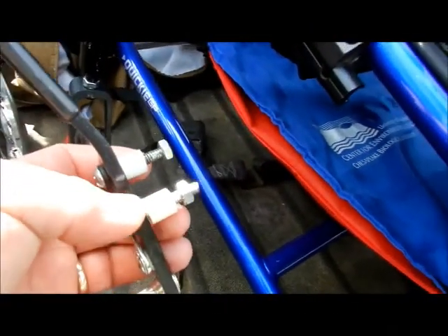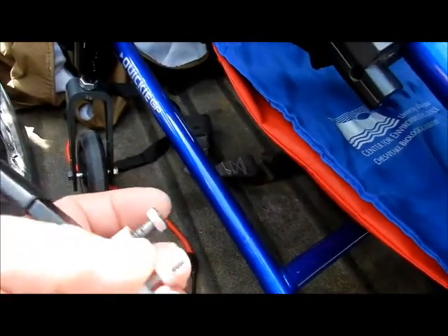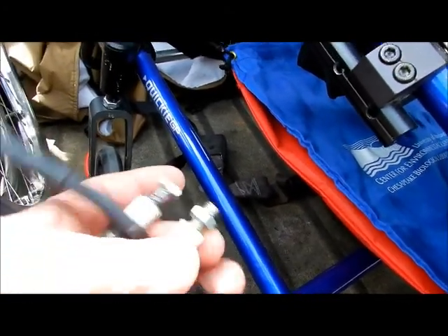Right in that area — so if you did bring your tires out, I think we do need to bring those things out. What happened is the Loctite and everything I've used to try to keep these free-floating nuts from actually being loose has failed.